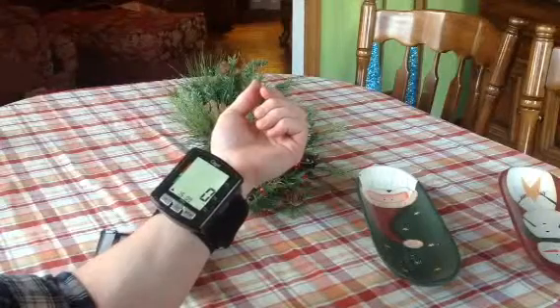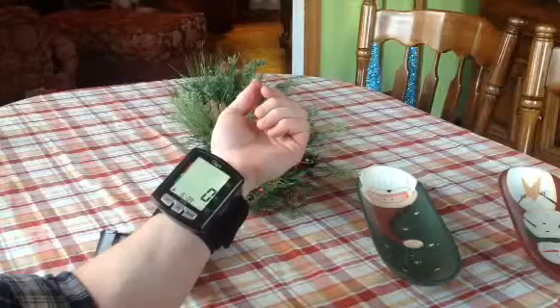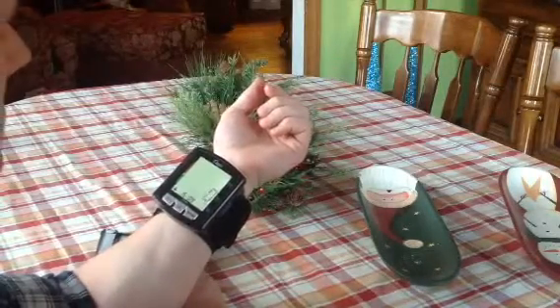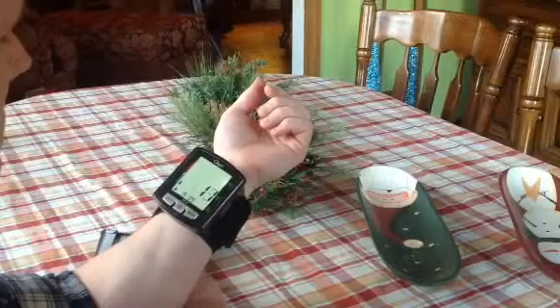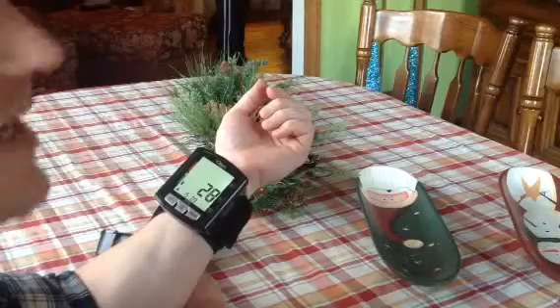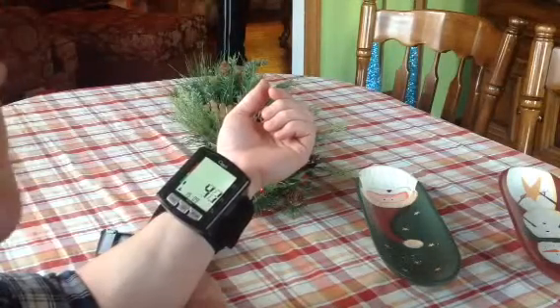See that? Pretty fantastic. The pressure monitor will now activate — remain still until complete. The manual's on the side. The lady has a great little British voice, better than Siri if you ask me.